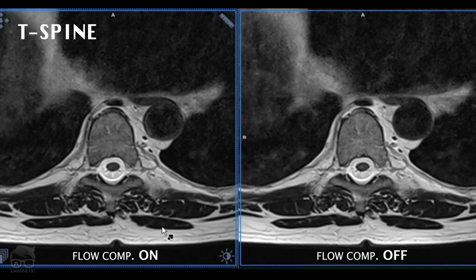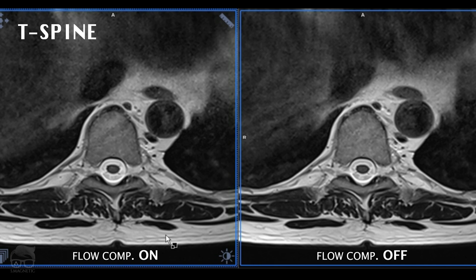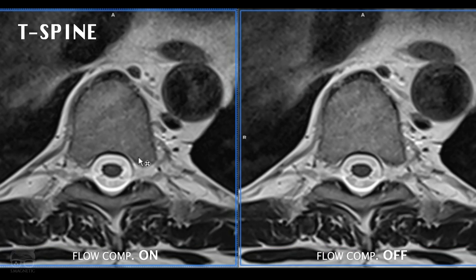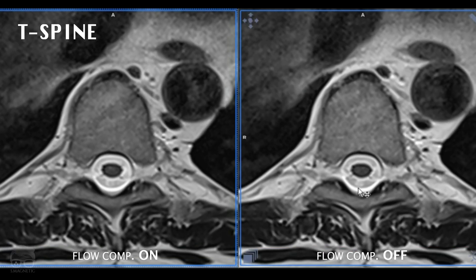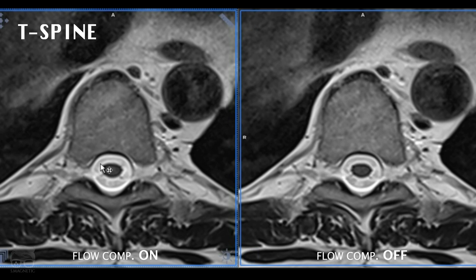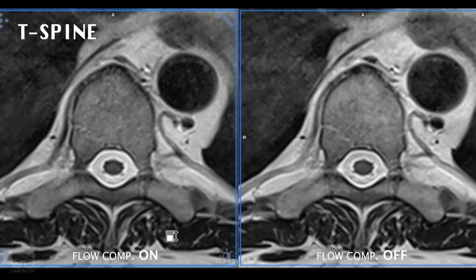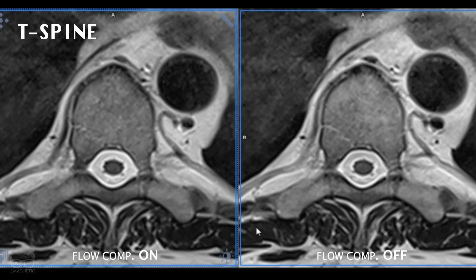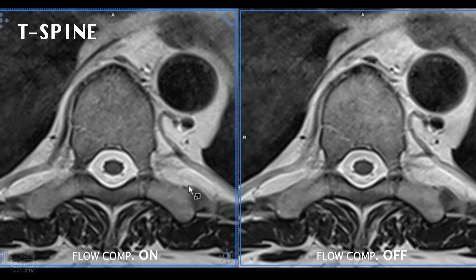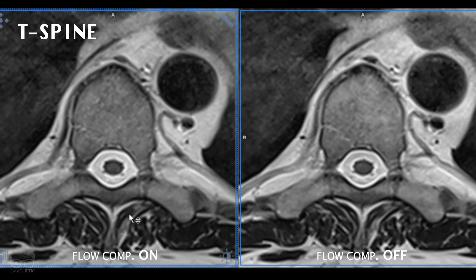Let's move to the T-spine. The first image is flow comp on, the second is flow comp off. It's a little bit different, but not very much. For the T-spine, it's a little bit more difficult — I need to test this out more before I decide to have it either on or off. It seems like having flow compensation on should be a little bit better, but I'm not quite sure. Need to test more.